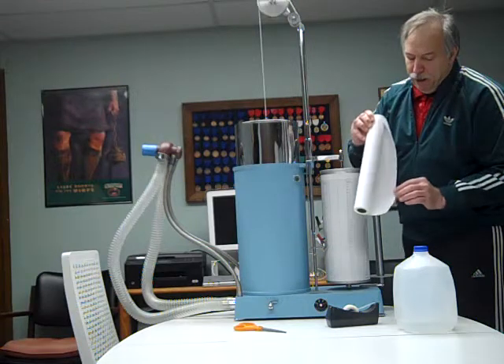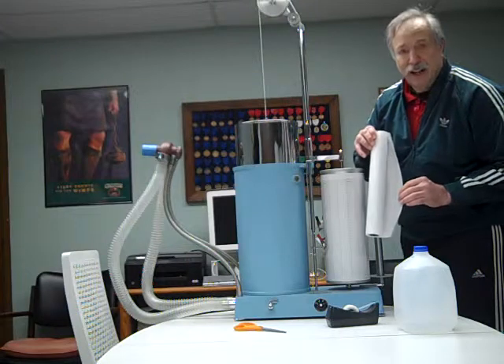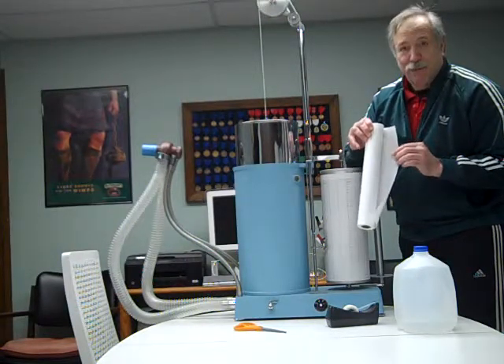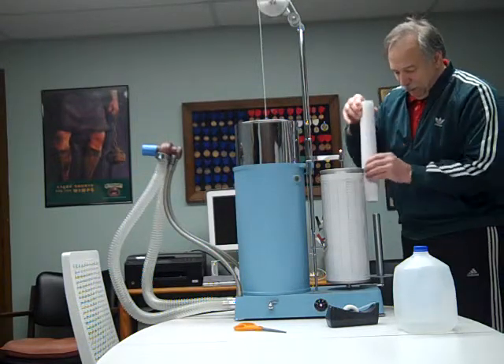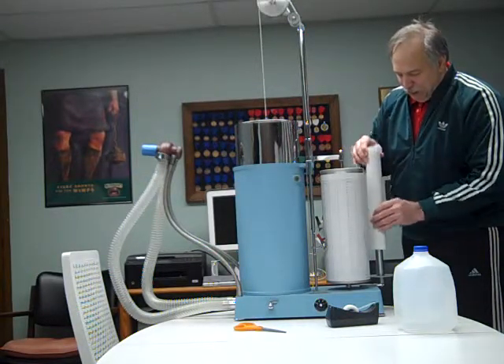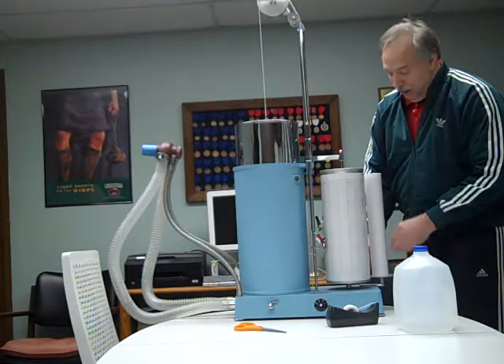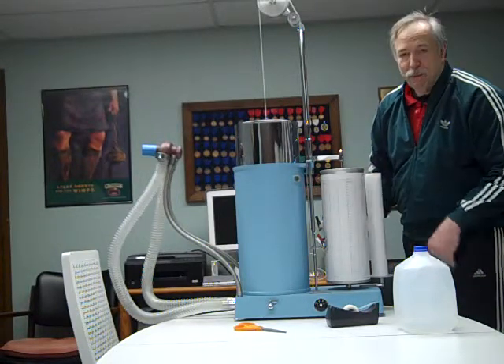The paper — you'll need for this drum to do one complete rotation — you need 15 seconds. So I usually cut the paper at 16 intervals so I have that extra one to overlap and tape on with. This extra spool is if you're doing tests longer than a few seconds; you can go on to a few minutes by having a continuous roll to collect the paper for you.